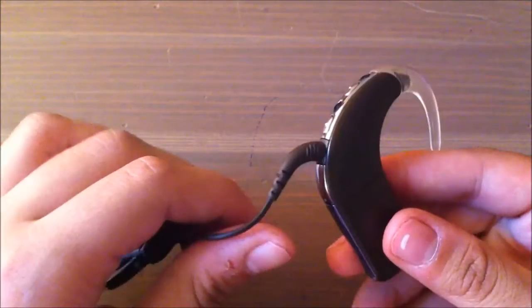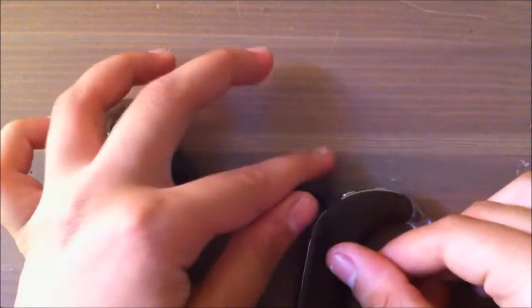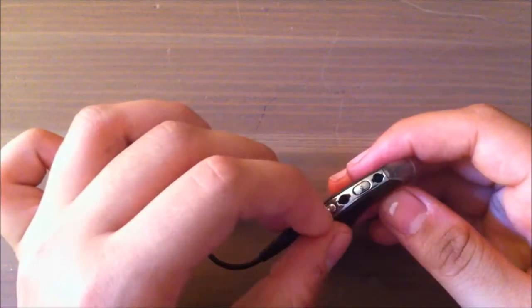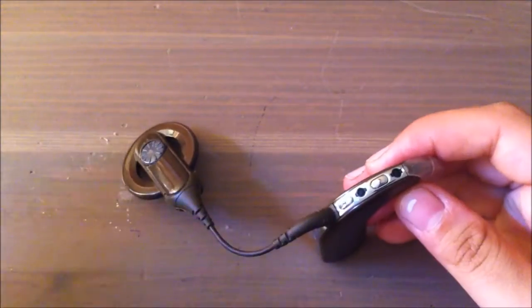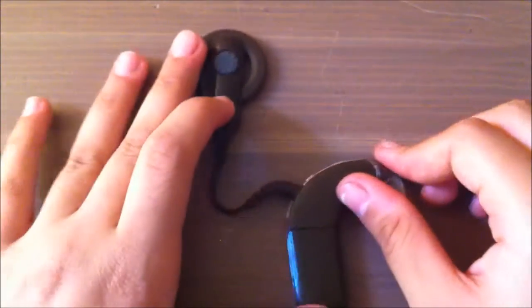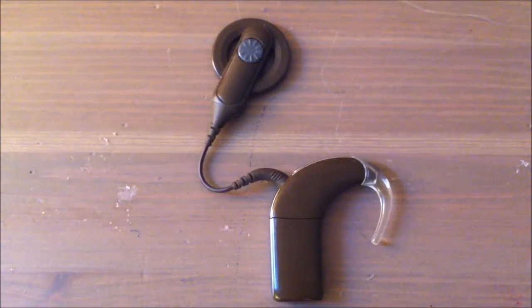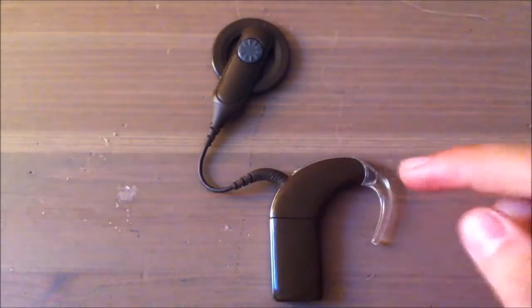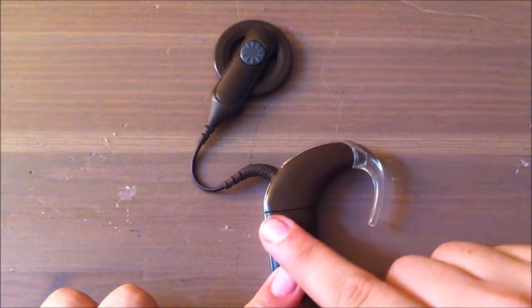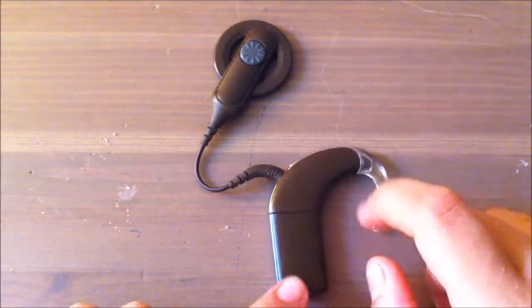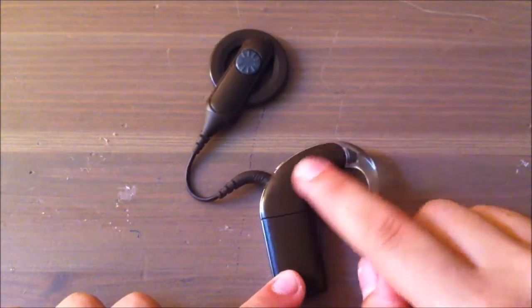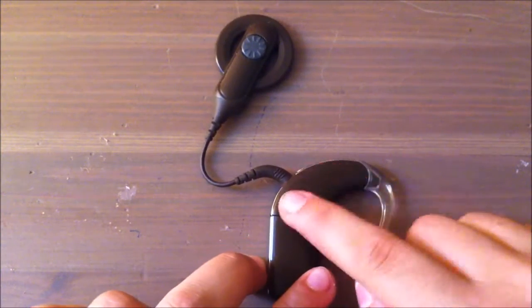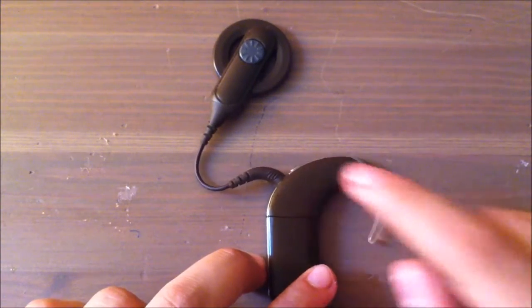These are two buttons for on and off and stuff like that. And this over here, if you can see there's a little line right there at the top, that's the actual processing unit.